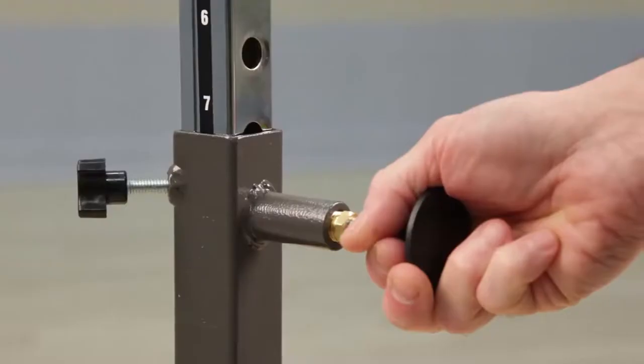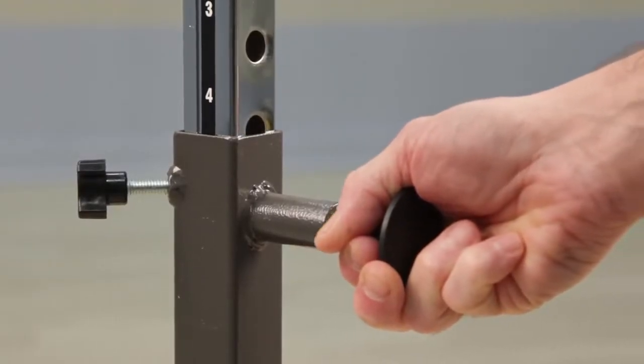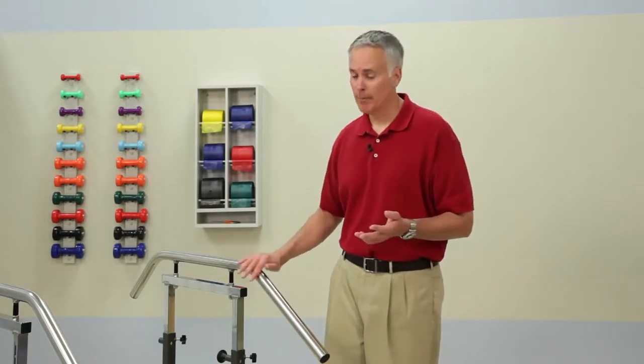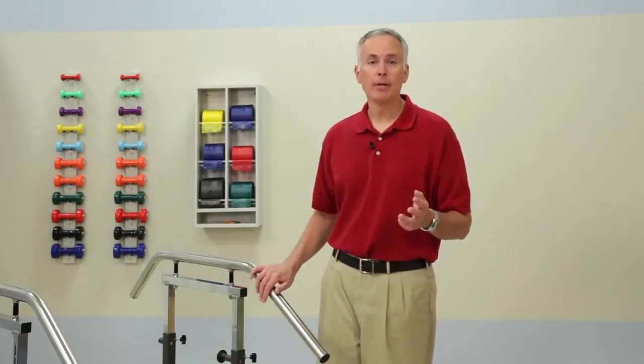Select series staircases are height adjustable and use steel sleeve uprights with spring-loaded plungers for easy adjustment. Rails are made from smooth, easy-grip, easy-clean stainless steel with end bumpers for safety.